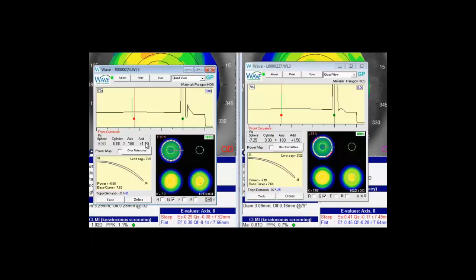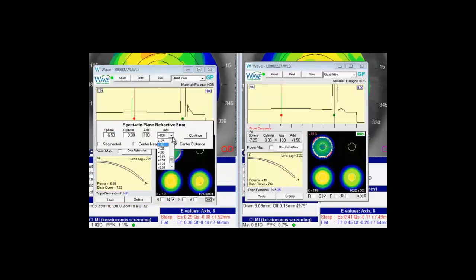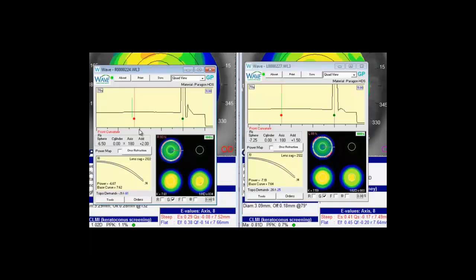Alternatively you can adjust the add power. So if you wanted more add power, simply select it, increase the add, and hit continue. And that's how we control multifocals on just about any wave design.